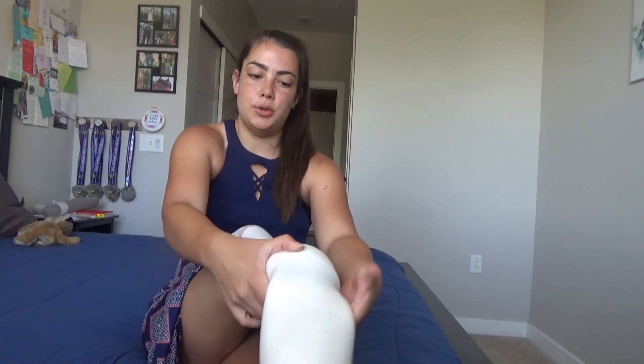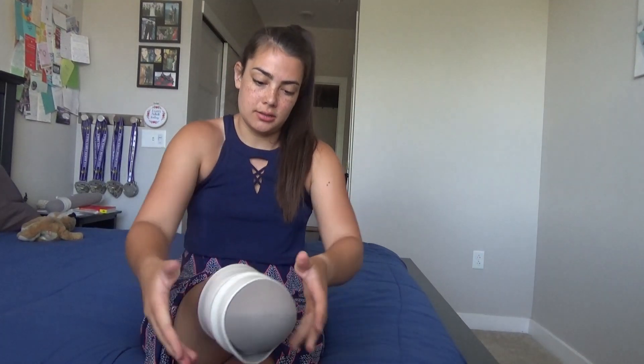This is my liner that I use to connect my real leg to my prosthetic leg. So I would take my underliner — it just pulls over. It has no compression at all, it's literally just a sock. It fits like a sock. And then I take my liner, it's already flipped inside out, and just put it over it. It does add a tiny bit of volume, so if you already have a really tight fitting socket it might be a little snug. But if you're doing something that you're going to be sweating a lot, odds are your leg's going to shrink anyways and it'll be great. But if you've ever done an activity and you have to take off your liner halfway through to drain the sweat out, this mitigates a lot of that. I still had to do it a couple times, but then again I was running and it was hot as bleep outside. So that's my underliner.